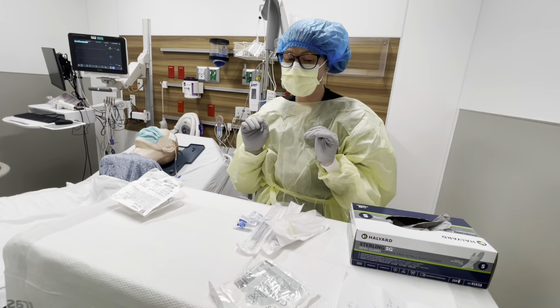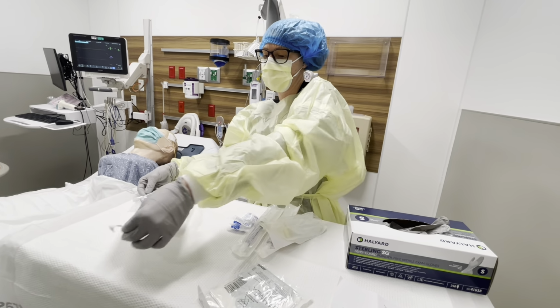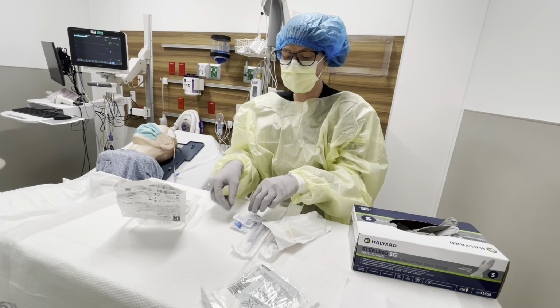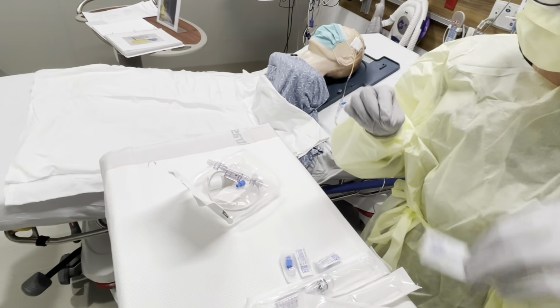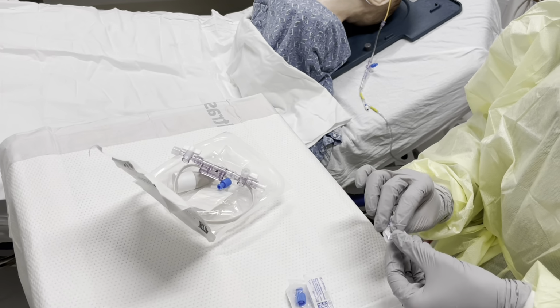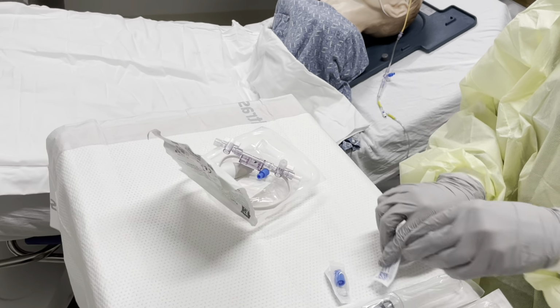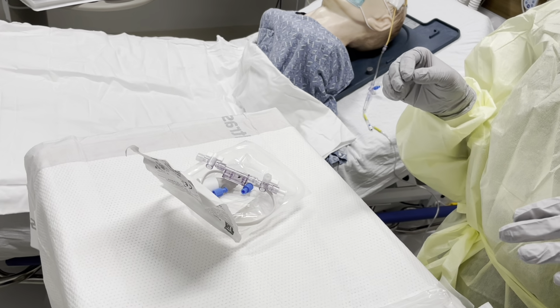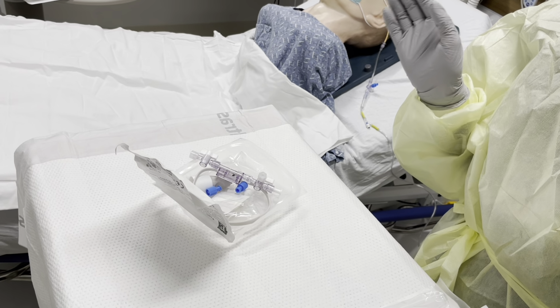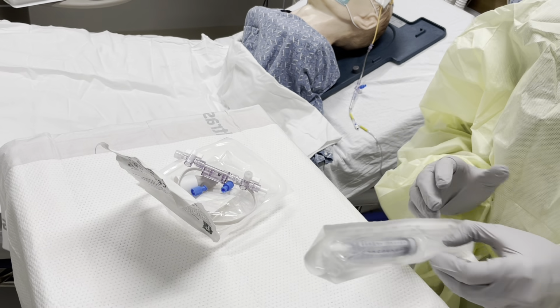The next thing I'm gonna do while that is air drying is start opening some of my sterile packaging. So I will open my sterile packaging, okay? I will open my little blue caps, and I will put them in. Again, I'm still clean at this point. I'm trying to touch nothing. Drop them in. So, if you need extra equipment or extra supplies, you can always reach out and ask somebody. The next thing I'm going to do is open my sterile saline.